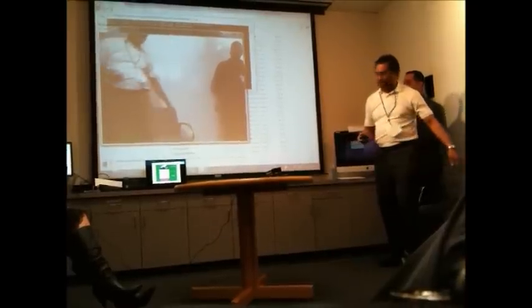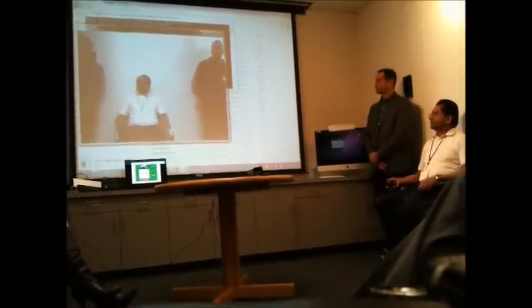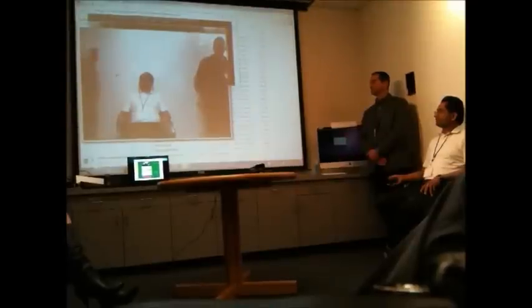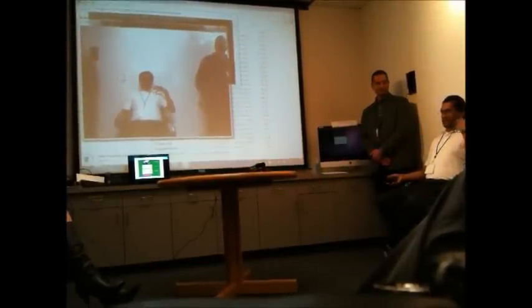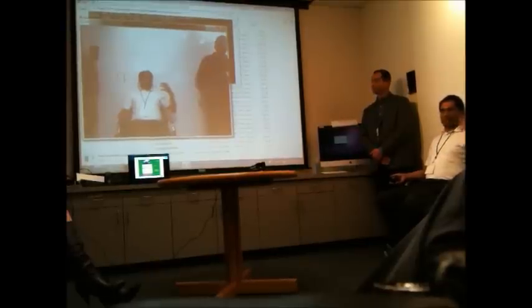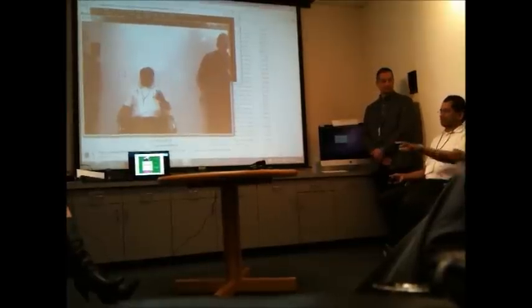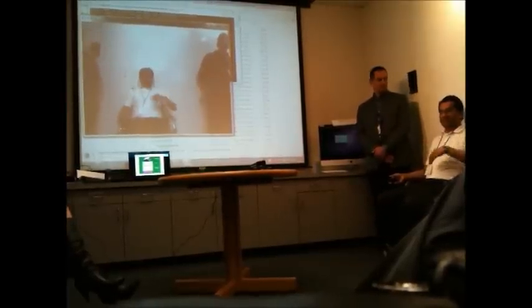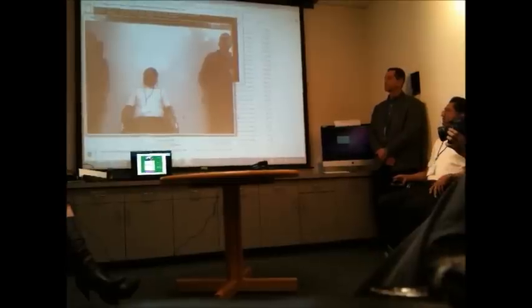We're using an Xbox Kinect system here. The system projects an invisible dot pattern onto the subject and calculates the volumetric change as the person breathes. That change is projected onto the screen — as I breathe, there is a measurable change in volume.